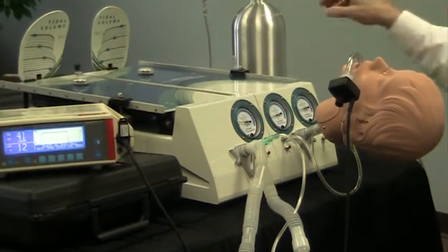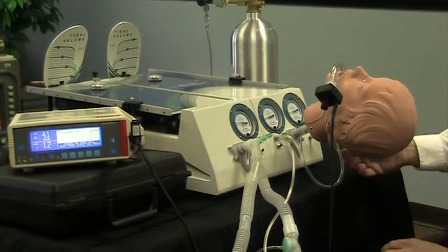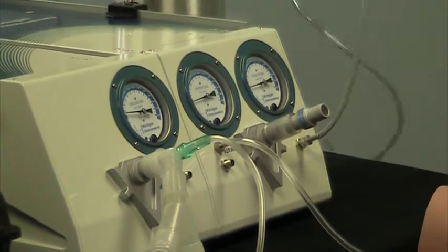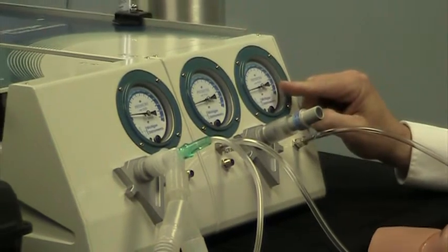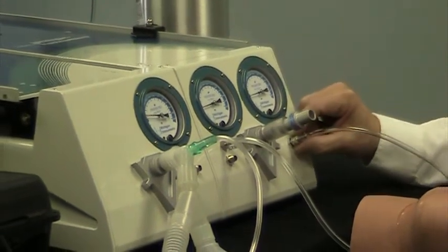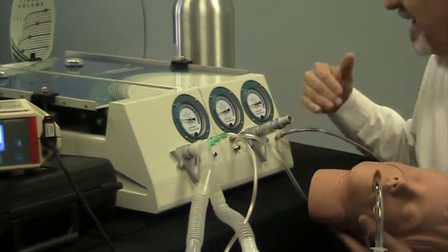What we've done is we've taken a CO2 tank with a low-flow regulator and flow meter, and we are bleeding a small amount of carbon dioxide into this spontaneous breathing lung. We've run a line in here using the pressure pickup adapters that come with the test lung. You screw it on to this port here, which feeds directly into this lung. That line is checked and closed until you screw on the pickup adapter — once you screw it on, you've opened up that line of access.